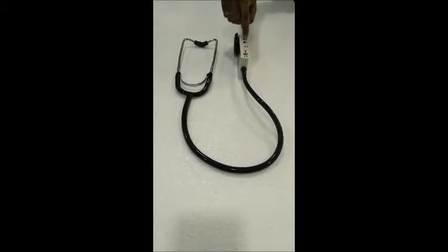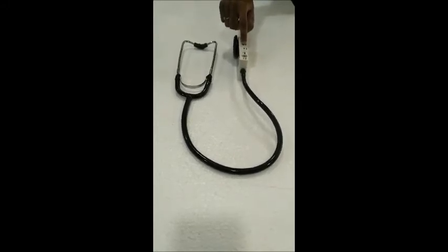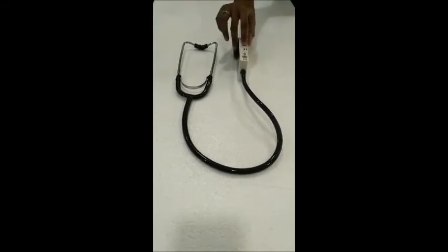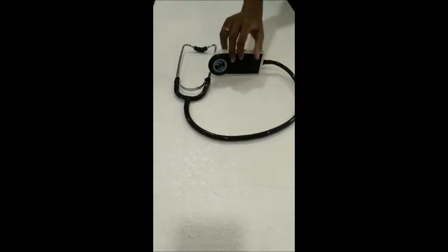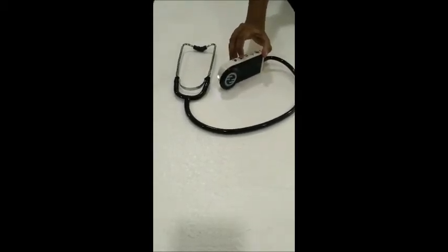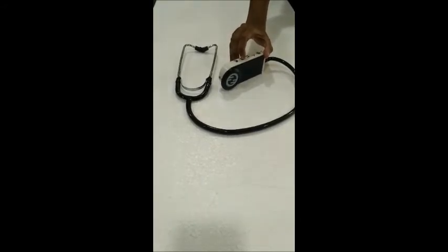Next is the torchlight switch. On pressing this switch, it turns on the torchlight. When the stethoscope is slightly tilted downwards, it can be used for examination by the user.